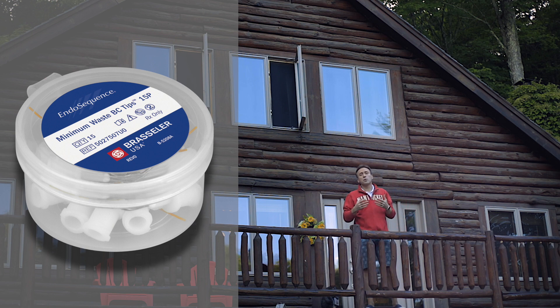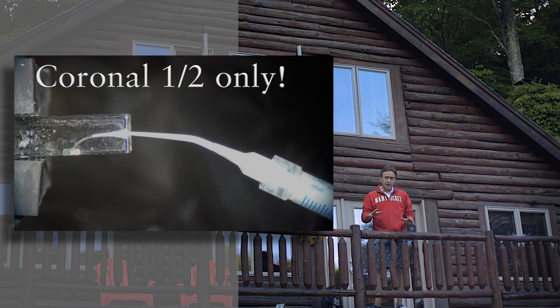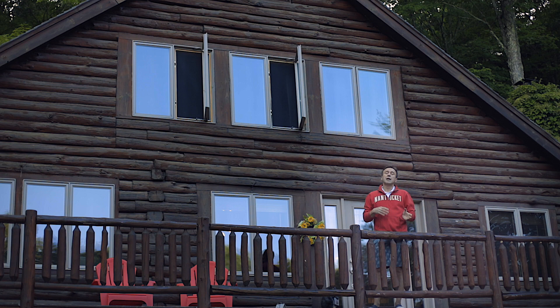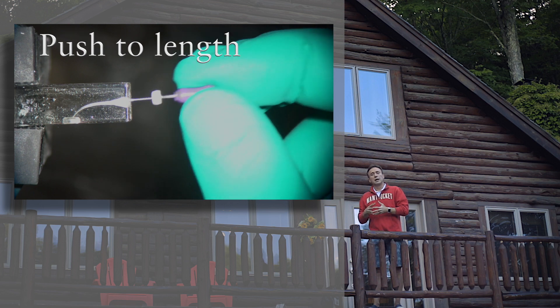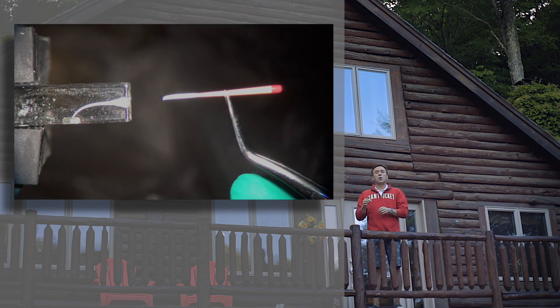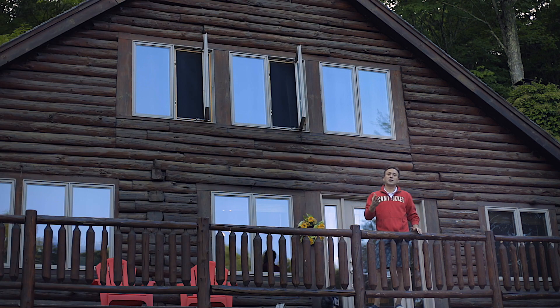This was in direct response to many of you who thought the normal dispensing tips that come with the BC Sealer have way too much waste associated with them. These minimal waste tips were designed so that you don't have sealer left in the hub of the syringe, nor a thick needle with too much sealer remaining after application — hopefully helping you save more sealer and drive your dollar a little further. What I liked about the original tips was that the back could be used as a reservoir after injection to dip your cone and place it into the root canal. But these new tips offer more savings, and they're available through Brasseler USA.